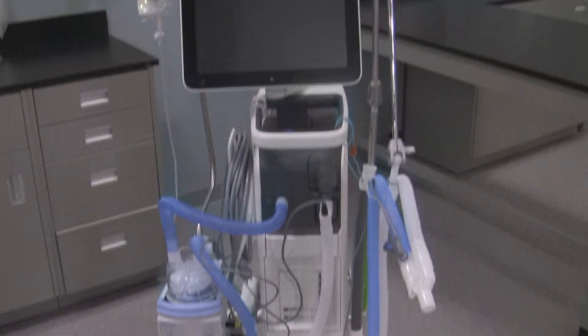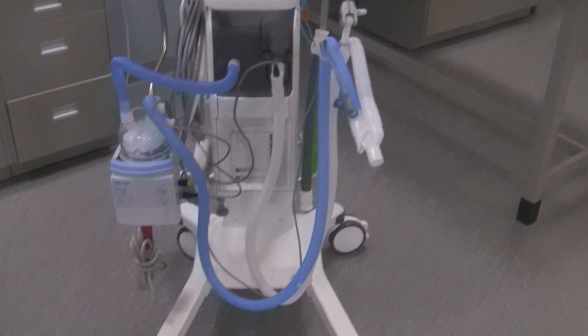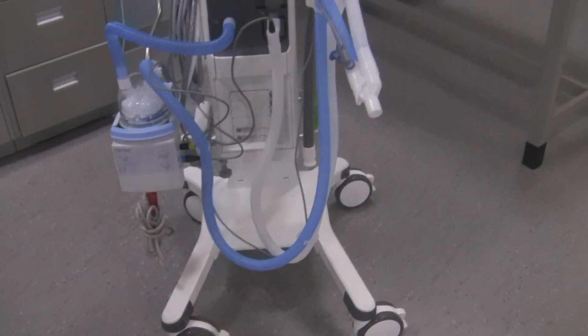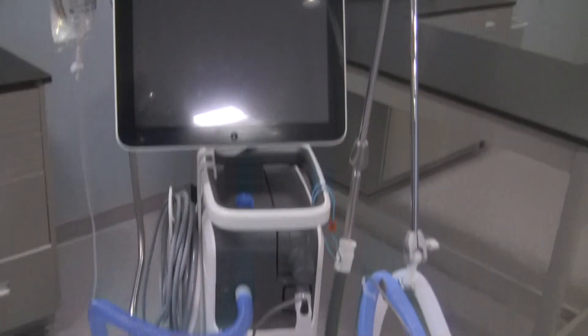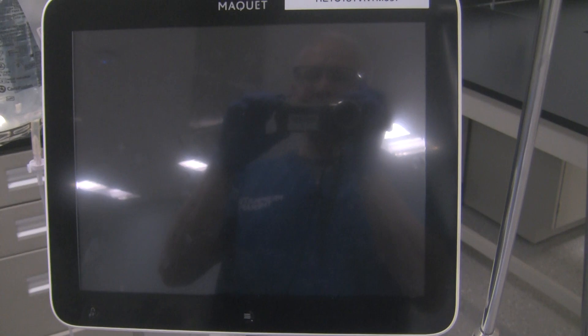It's already been circuited — the circuit's on there almost appropriately for my liking. Now, let's start off with the screen. Right here on the screen, it's a completely touch-control screen. There are no hard knobs that you can turn on this. It's all touch screen.